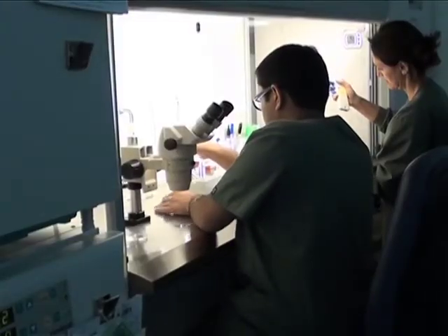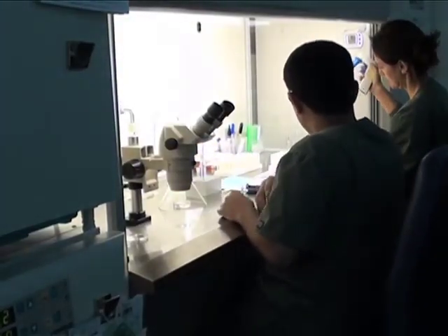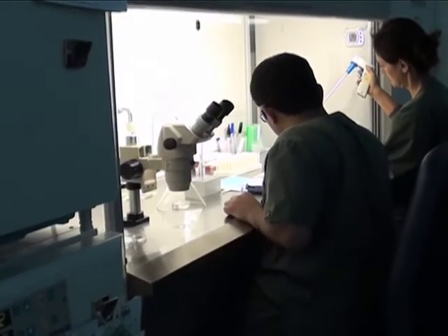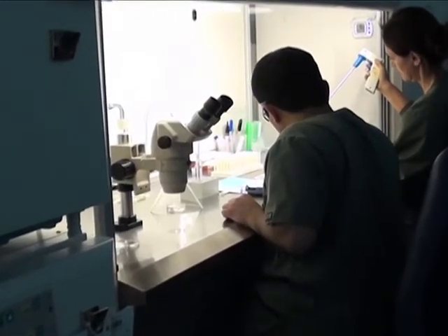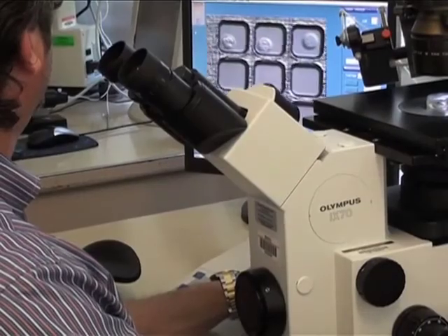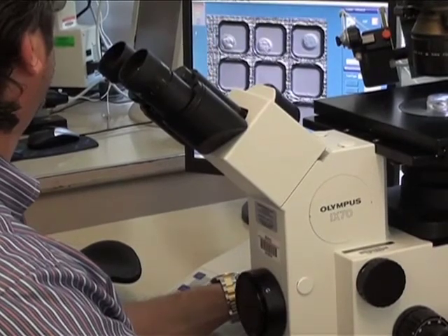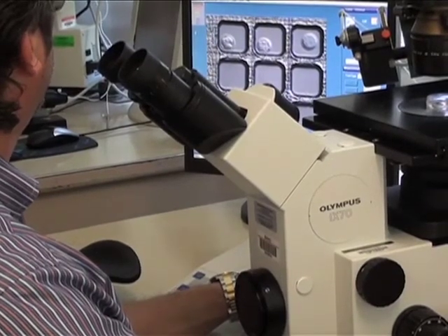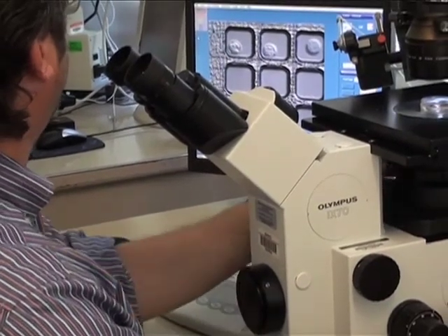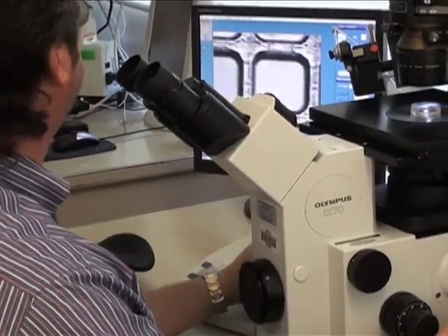Automated extraction of the cell cycle parameters will be performed for each embryo using a cell tracking algorithm. Embryo selection for transfer will be based on the predictive imaging parameter analysis, in addition to other criteria currently used in clinical practice.